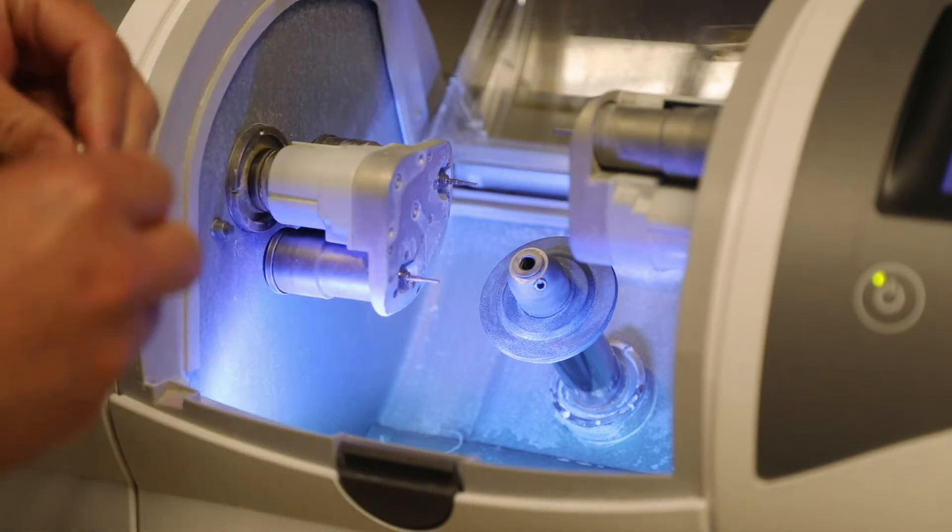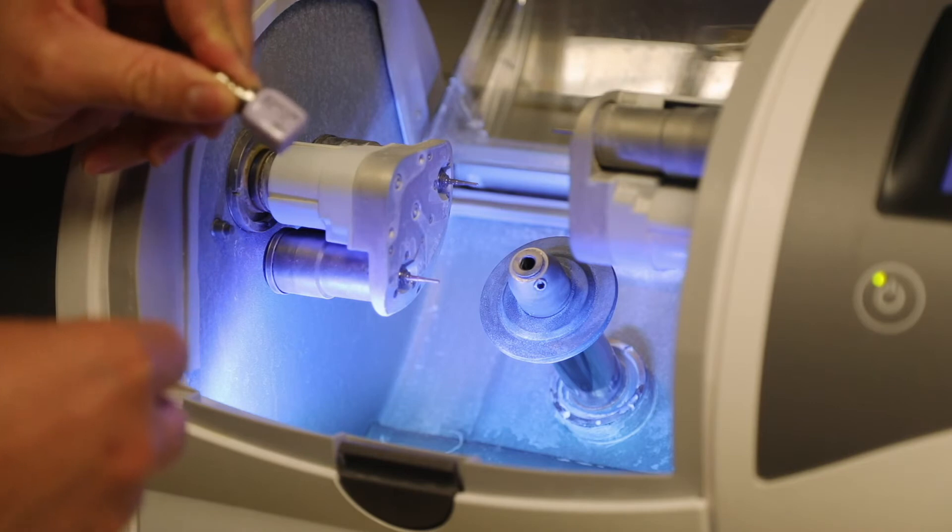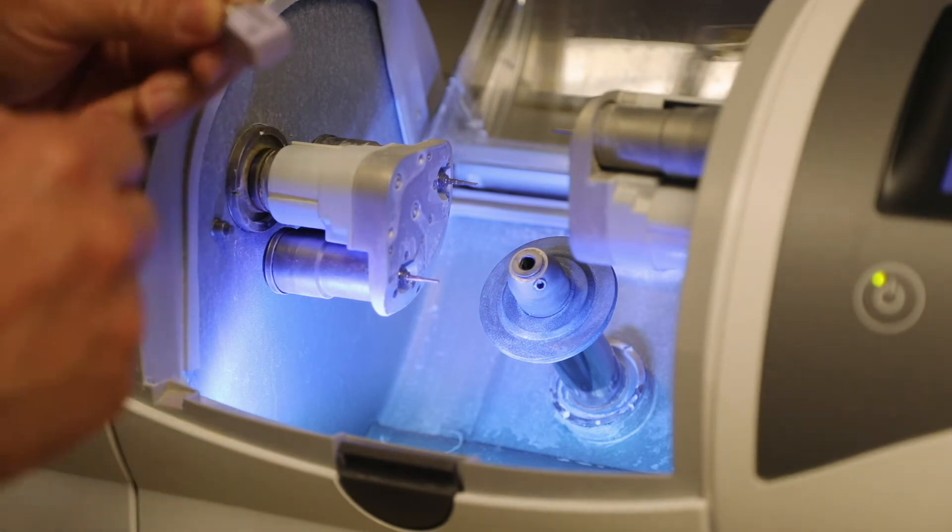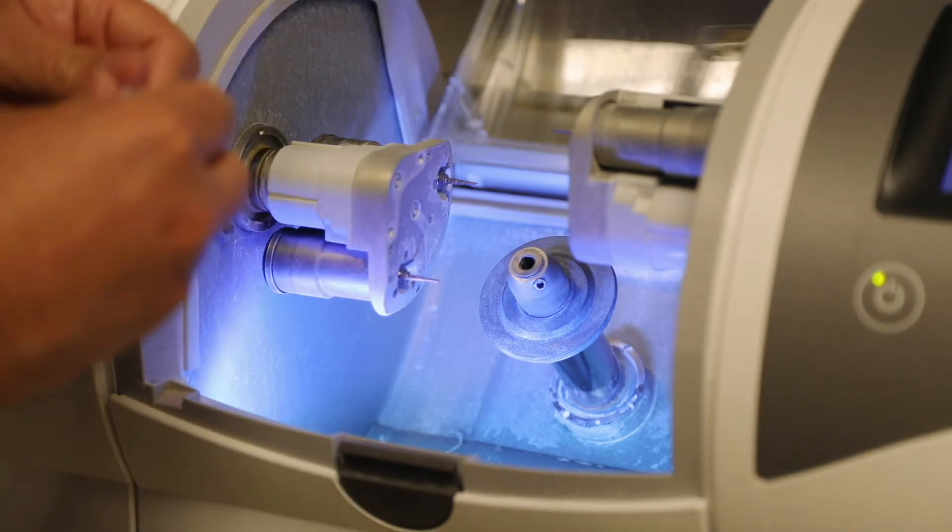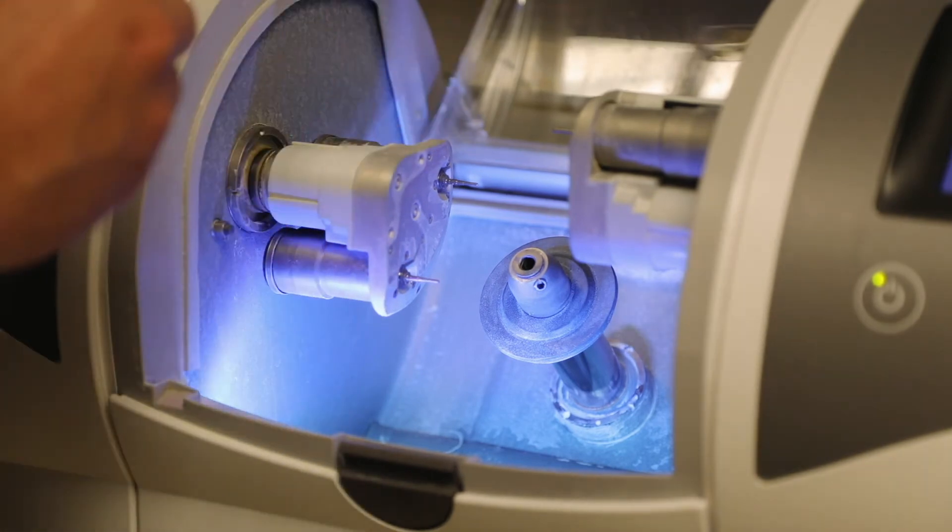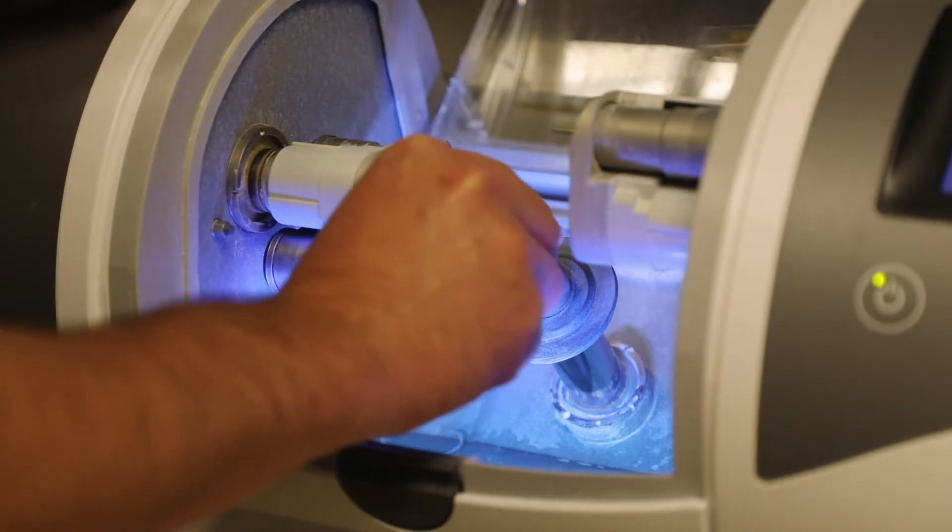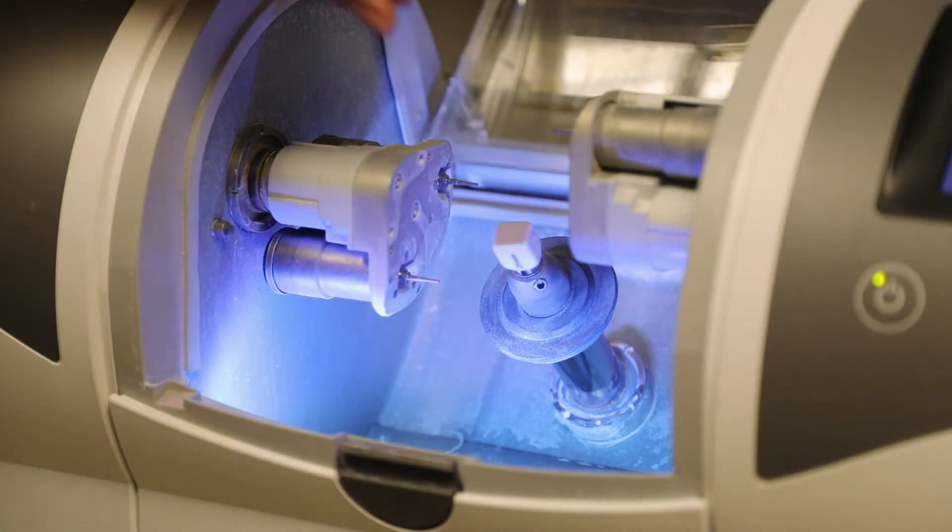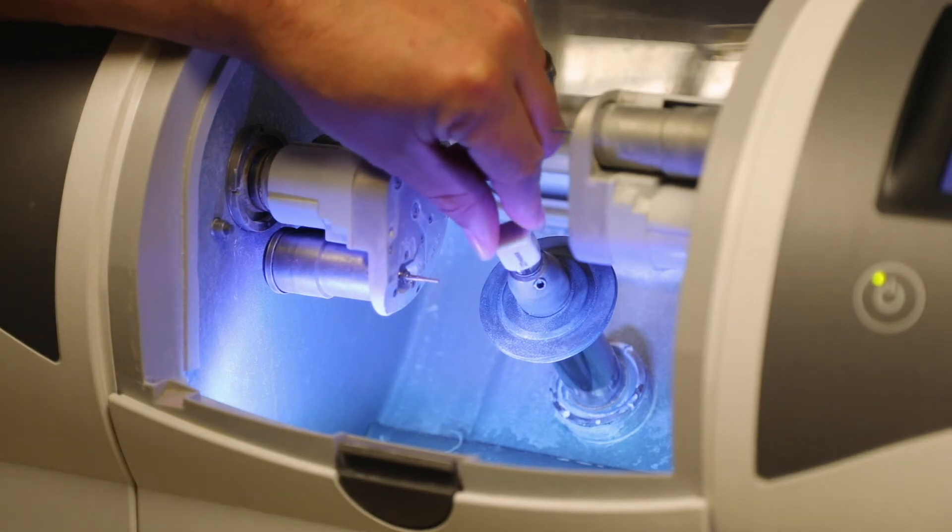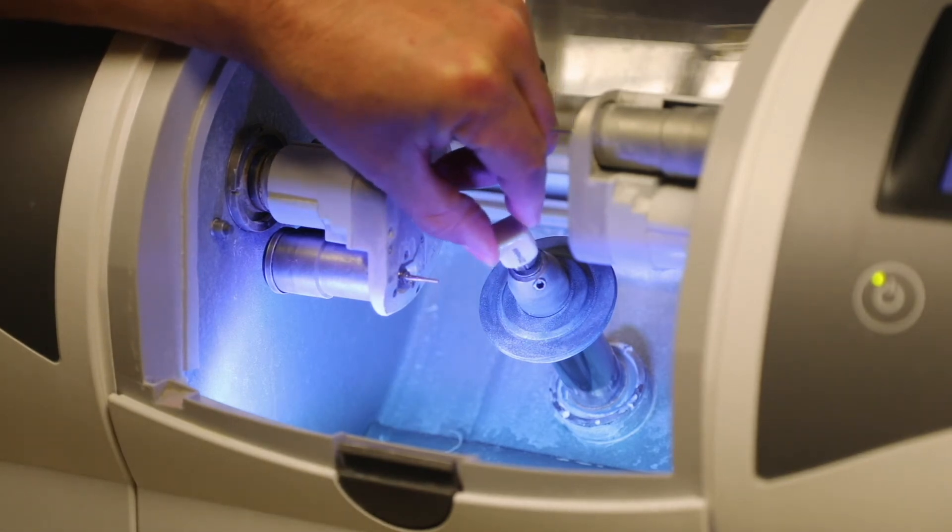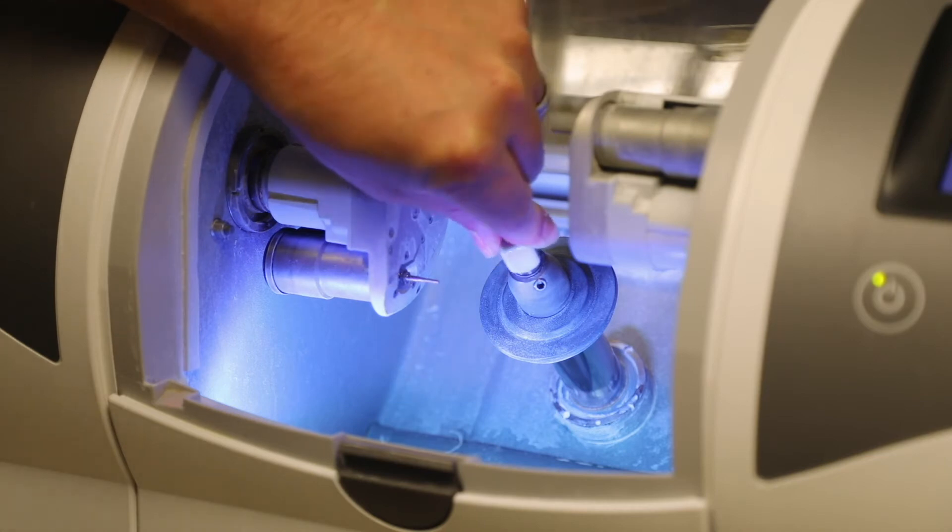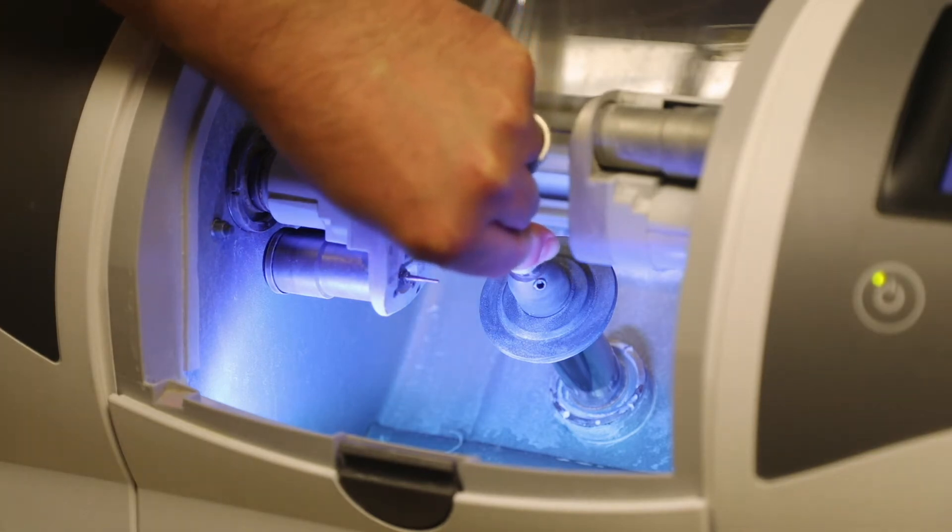So we need to insert our block. So I have here an LT shade A1, so make sure you pick your shade C14 block, which is what we said we were going to mill. So I'm going to insert this in. Now when you insert this it's very important that you make sure it's seated all the way. So as I insert it, one of the things I'm going to do is I'm going to rotate it and basically rotate and push in until I feel that drop. So did you hear that?